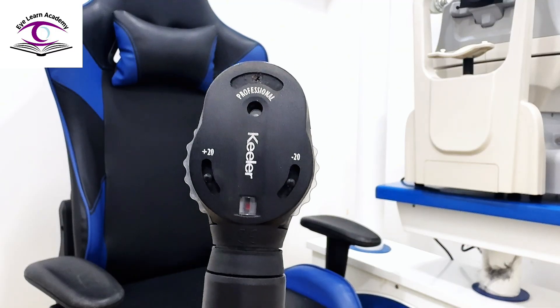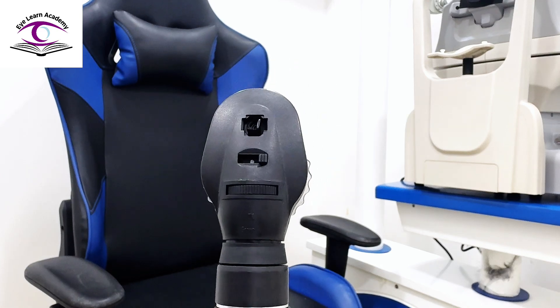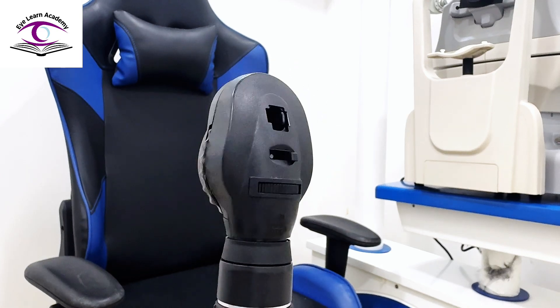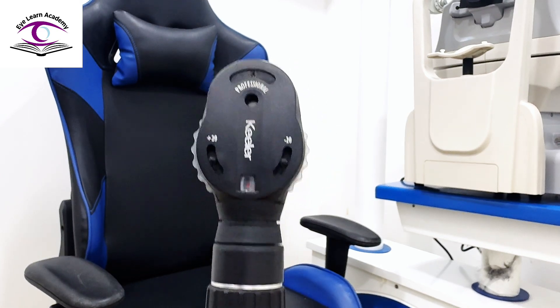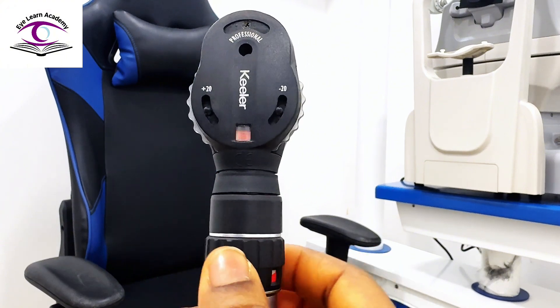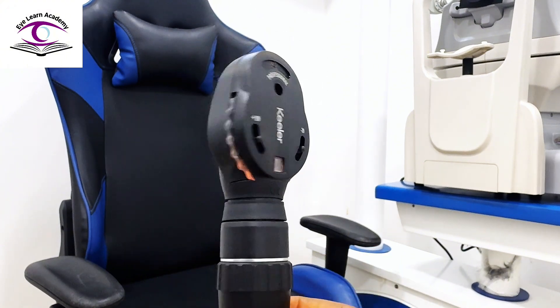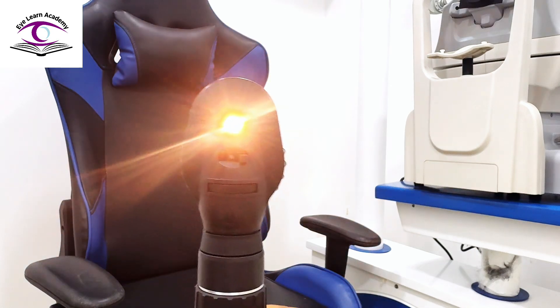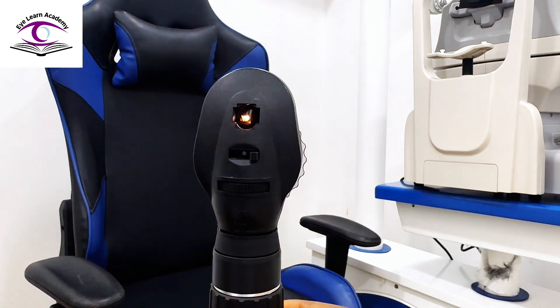We'll be looking at the ophthalmoscope. This brand is the Keeler Ophthalmoscope. We're going to be looking at the parts. There are different brands out there, but this is what I have in my practice. This is the power knob. You can turn on and off from there. You can also increase or reduce the intensity of the lighting.